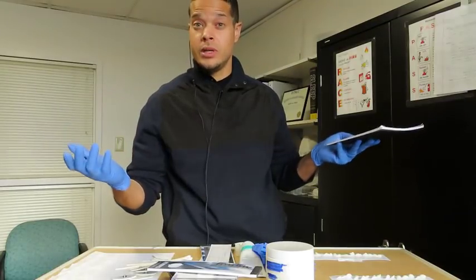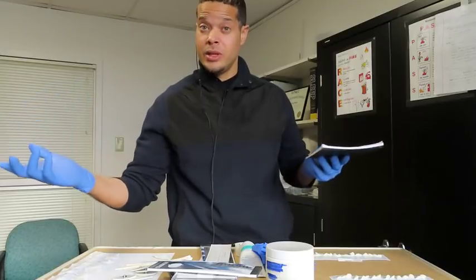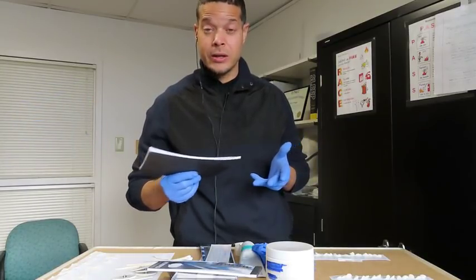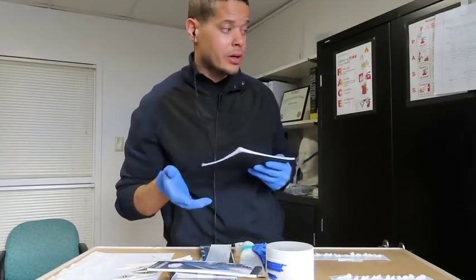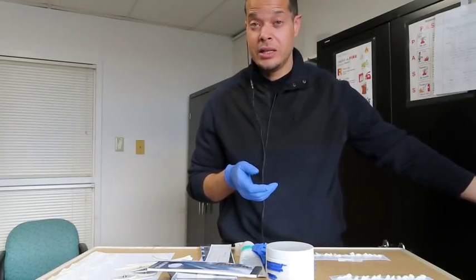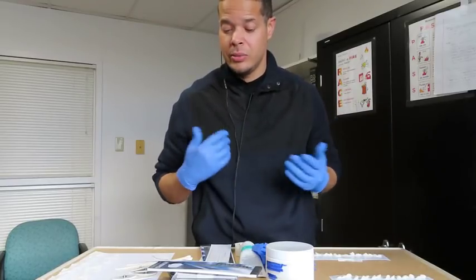I've been using it for years. It helps so much. It basically helps me connect more with the patients, so that's why I really love using this system here. Again, I've been in sleep for about maybe 13-14 years. Right now I don't really work nights that much, or actually doing the studies, but it's been something I've been wanting more people to use, just so they can help with their setups.